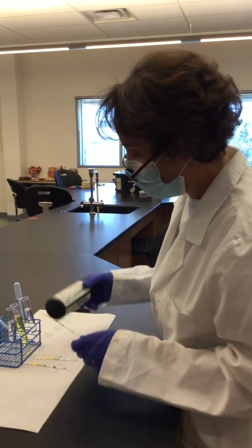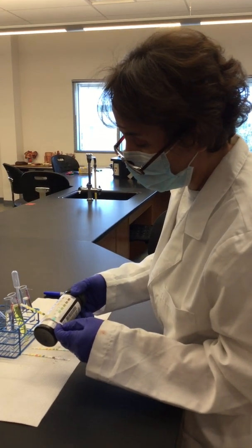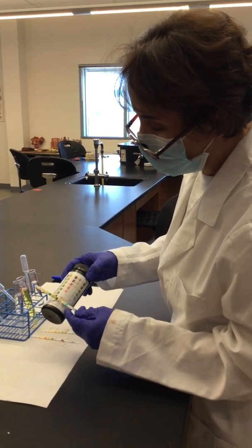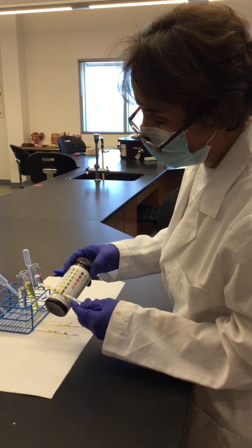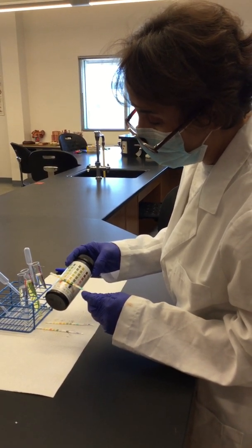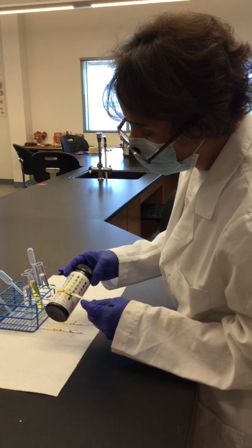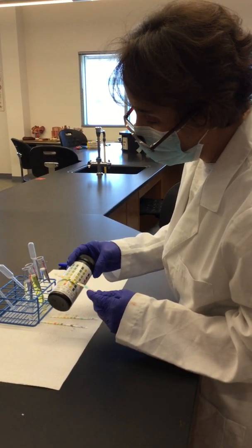Now for sample abnormal B, it's negative for glucose, negative for bilirubin, negative for ketones. Specific gravity is 1.00. Blood, it has some tiny green dots in there, so it can be in between trace or moderate.